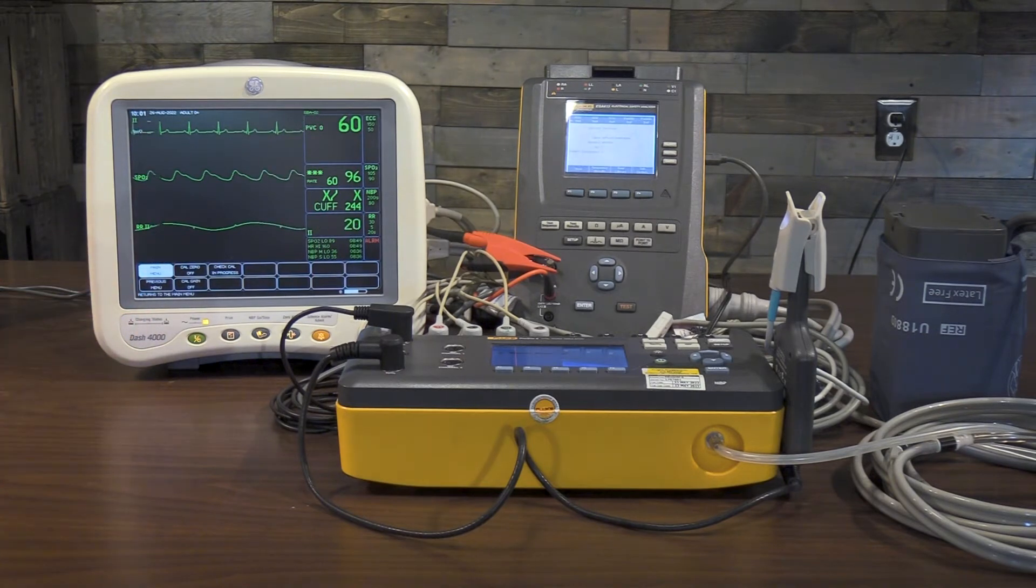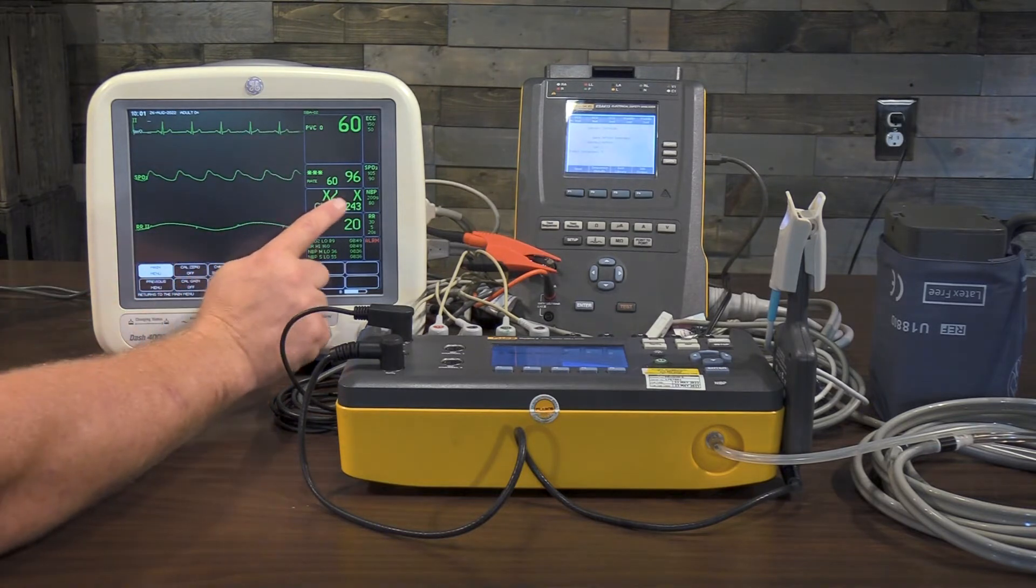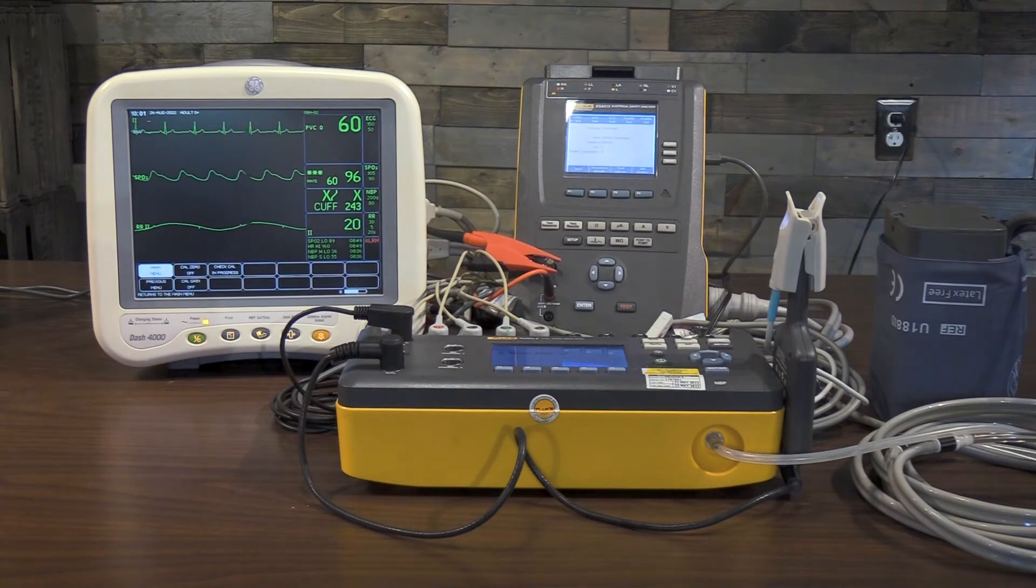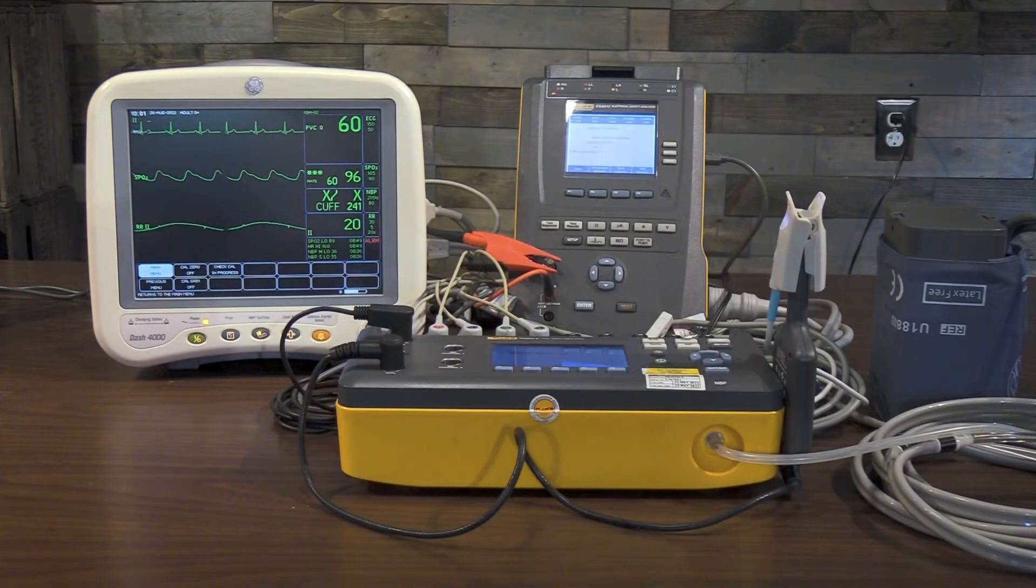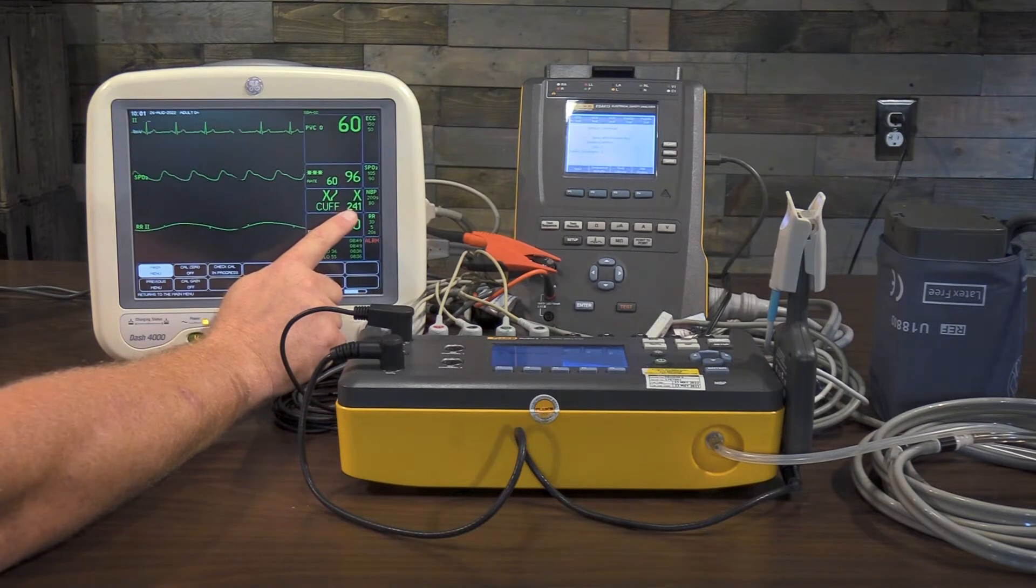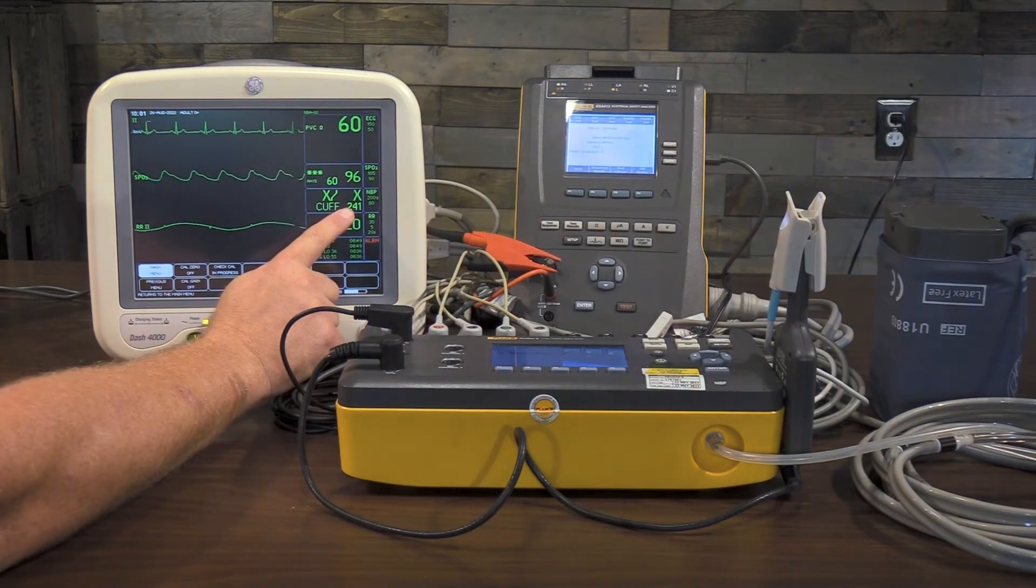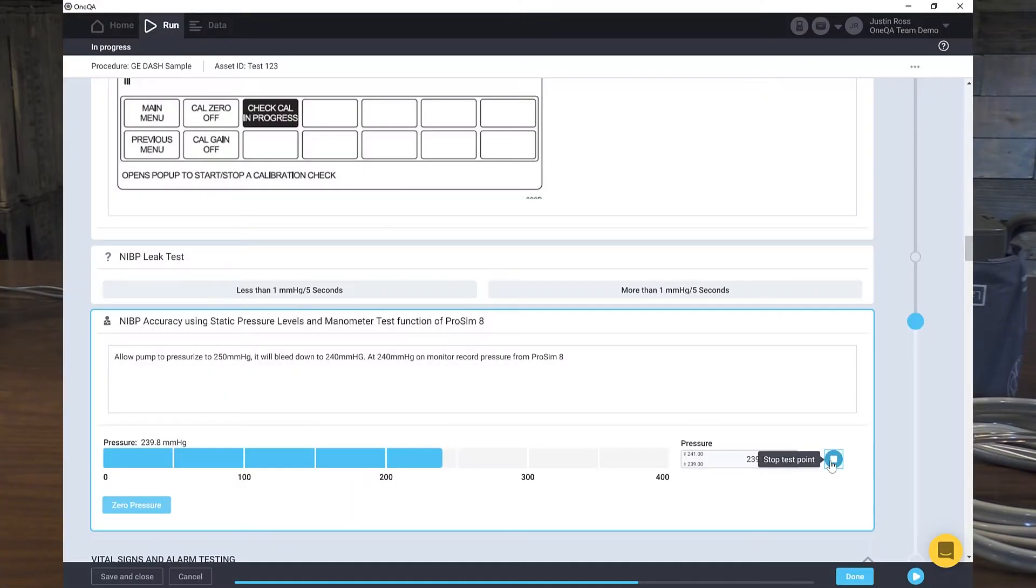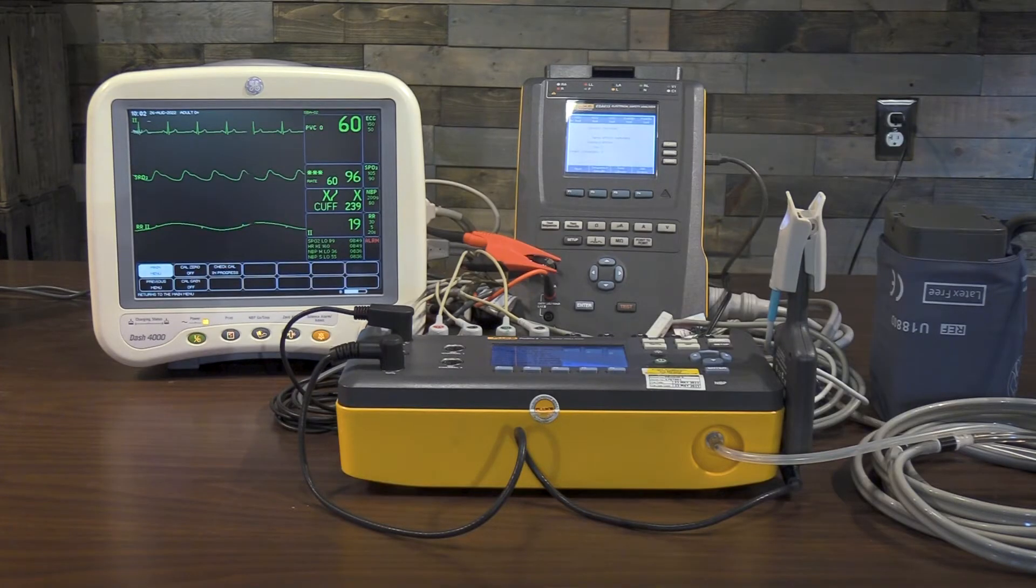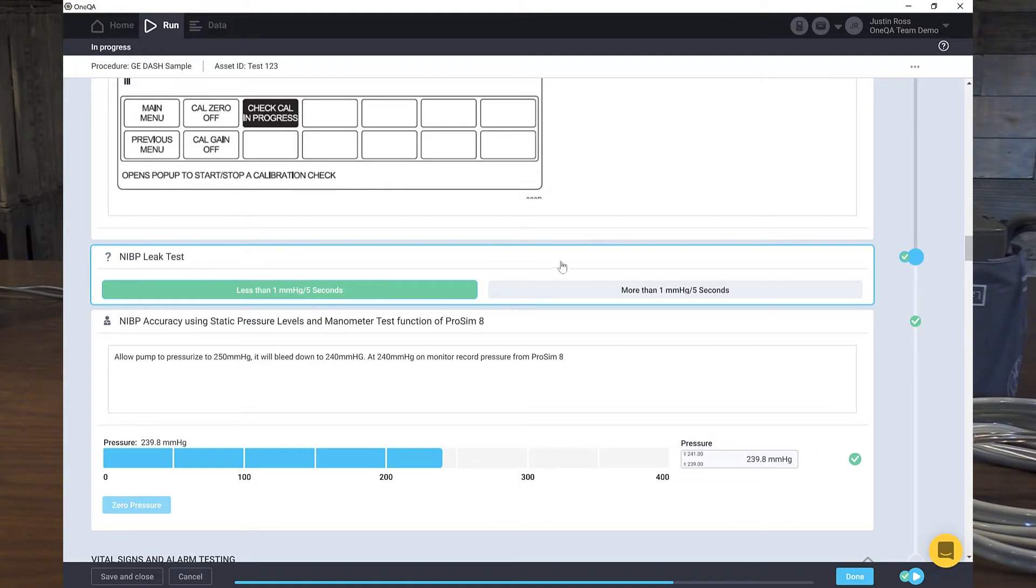So we pumped up to 250, and it's going to bleed down to 240. When it says 240 here, we're going to go ahead and push the stop button here. And if the pressure is within tolerance, which is plus or minus 1 millimeter mercury, we'll get a pass. If it's without that, we'll get a fail. So we're at 241. Wait until this goes to 240. It's bleeding down a little bit more to bleed down here. There's at 240. So I'll push the button here. And my pressure was within 1 millimeter mercury. So 240 here, 239.8. Spot on. Now the next thing he wants us to do is wait after we reach to 240 and see if we're losing more than 1 millimeter mercury in 5 seconds. That pressure is holding pretty flat. So I'm going to say yes. We're losing less than 1 millimeter mercury in 5 seconds. Oh, which is a pass. Which means this test is done and this test is done. So we have our green lights on the right.